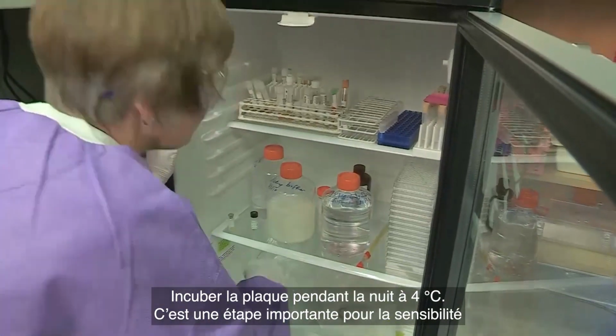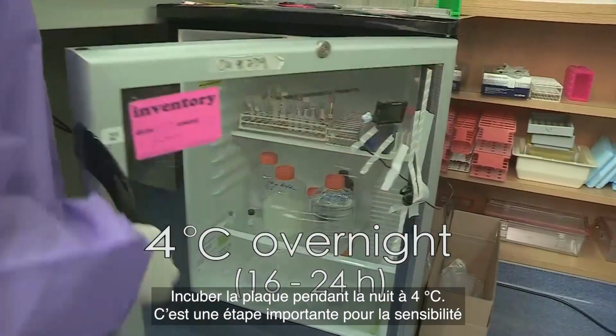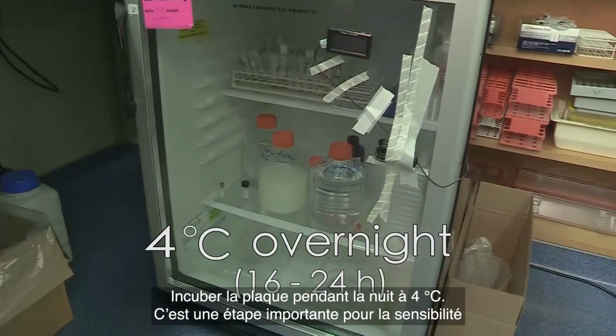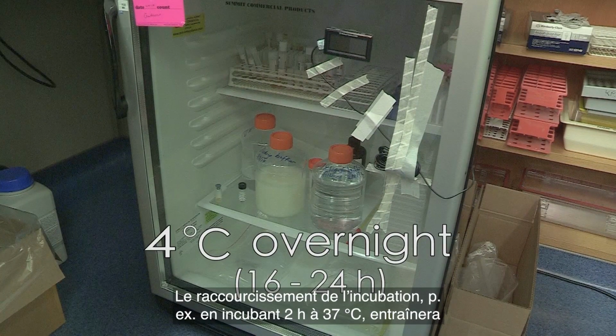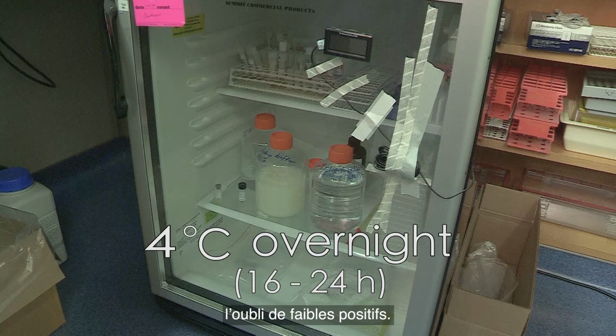Incubate the plate overnight at 4°C. This is an important step for the sensitivity of the test. Shortening the incubation, for instance by incubating at 37 degrees for 2 hours, will cause low positives to be missed.